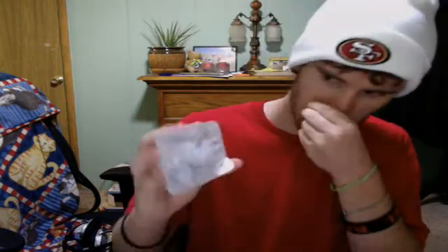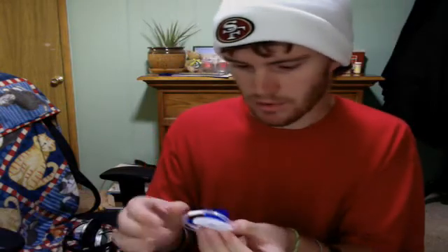Next step would be to rewind the pump, just like that. I'll let it rewind. And you've got your Medtronic Quick-Set — in my case mine is 32 inches, which is the middle of the three options. I kind of prefer this one.